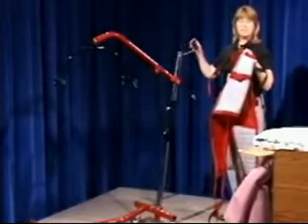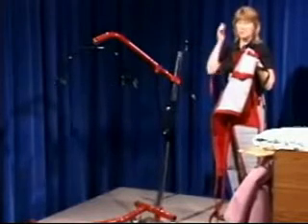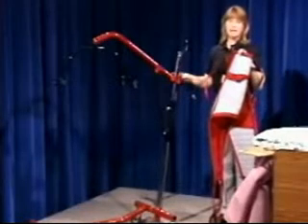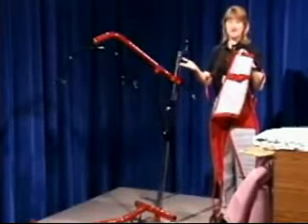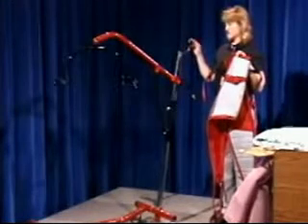They're very safe, but your patients will need reassuring because nobody's comfortable when they're suspended in air. So keep in mind that when you use a lift, you always use it for short distances, and you always just raise it as high as is necessary to move the patient from surface to surface.